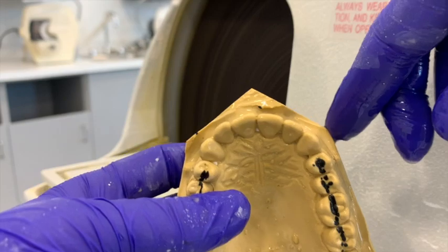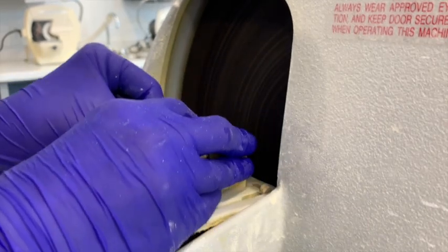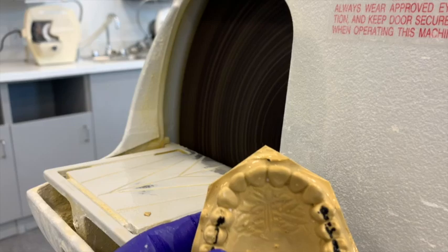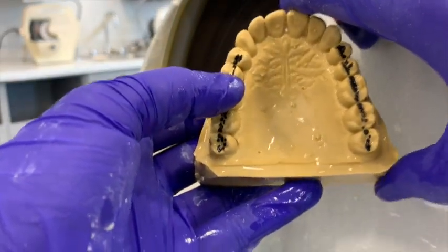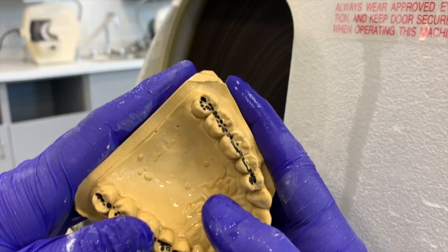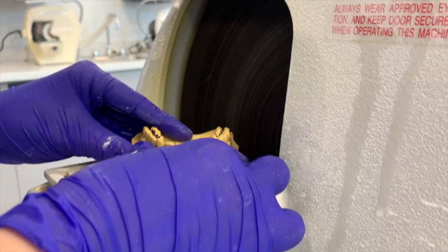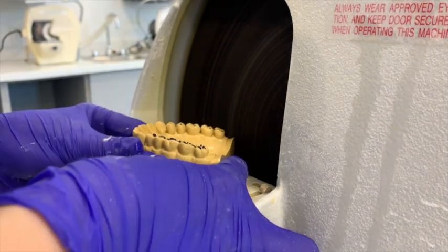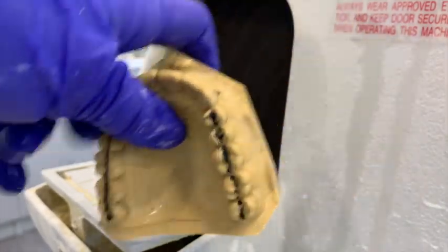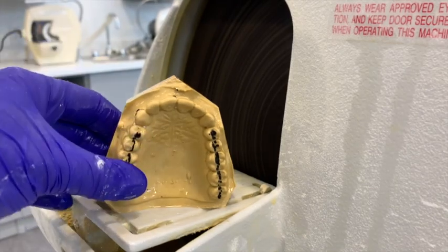It's starting to look pretty good — our points are a little off but getting there. At some point you may want to just keep going to get them perfect, but there comes a point where you just cannot trim anymore. Now we want to make sure we trim these back corners. To do that, I like to hold the model up and put my fingers on it and pretend it's an arrow — take that point and aim the arrow directly toward the wheel and push. This gives the correct angle. I'll do the same thing on the other corner. Now you can see the bottom corners have a small angle on them. It's better to look at your model from the back side to see the shape — and that's our maxillary model.